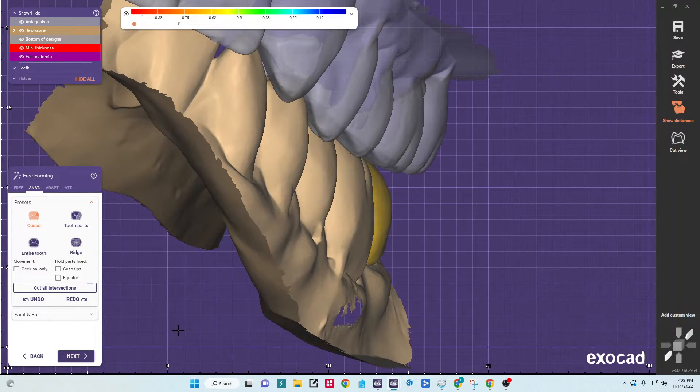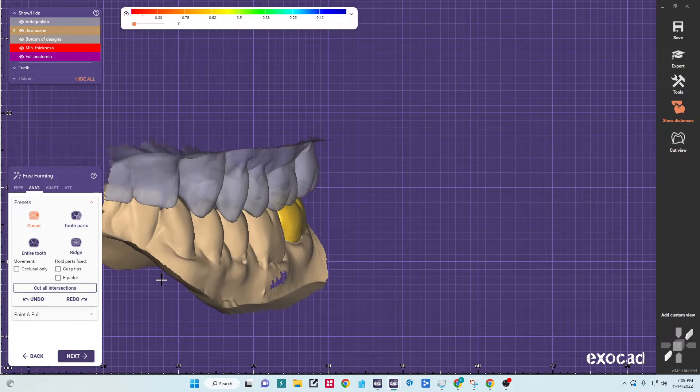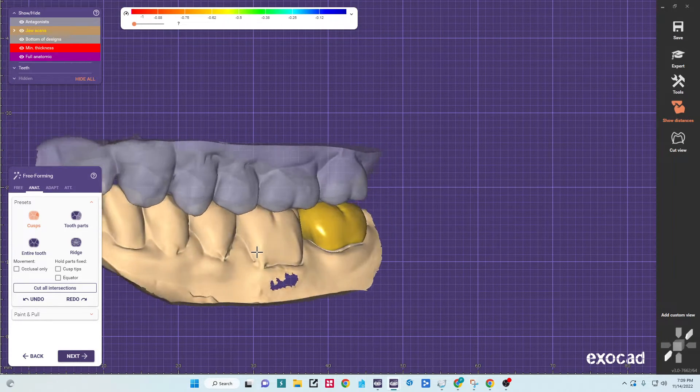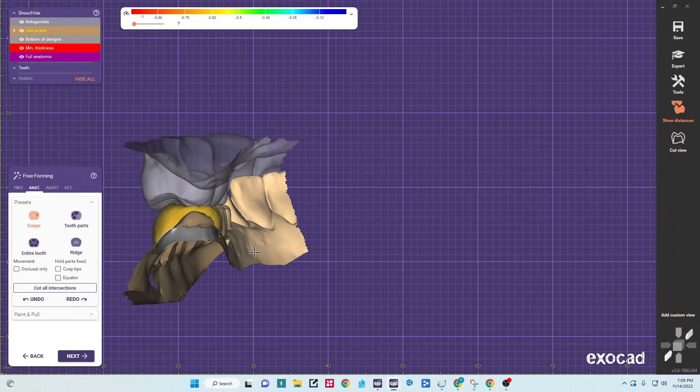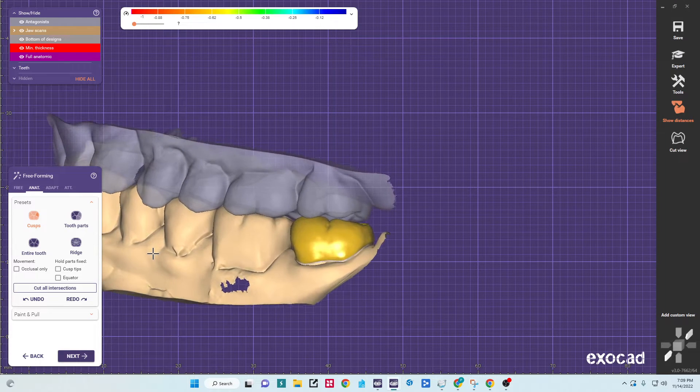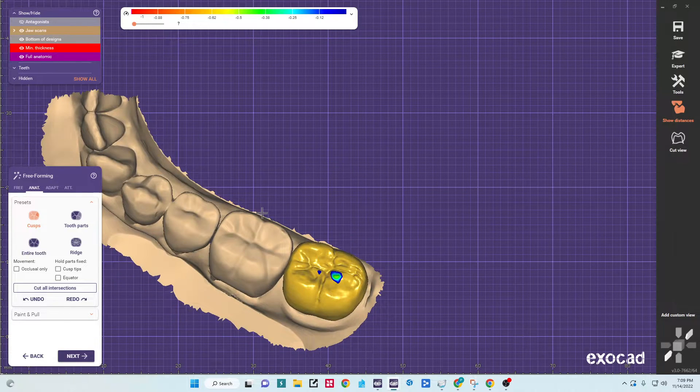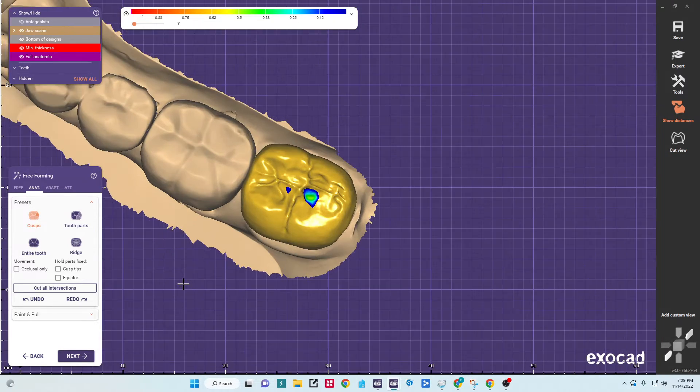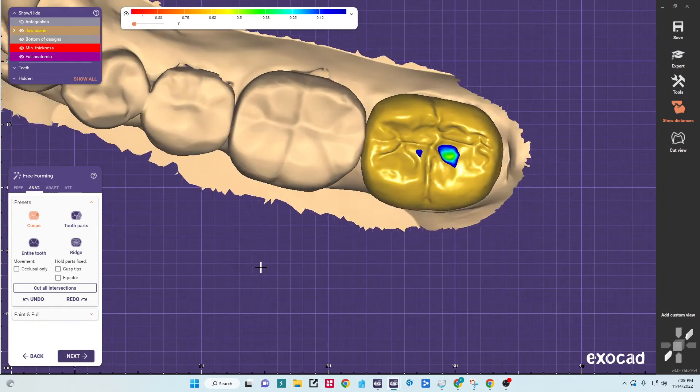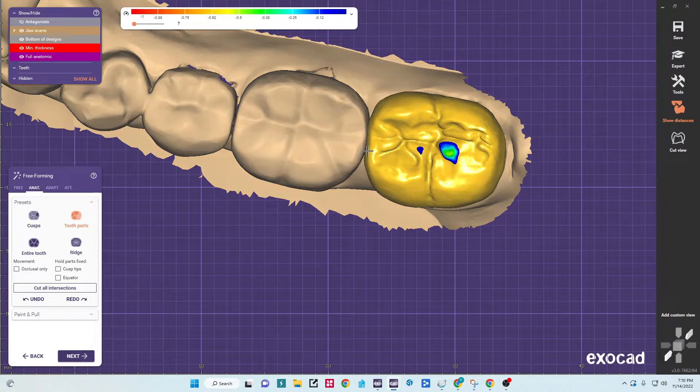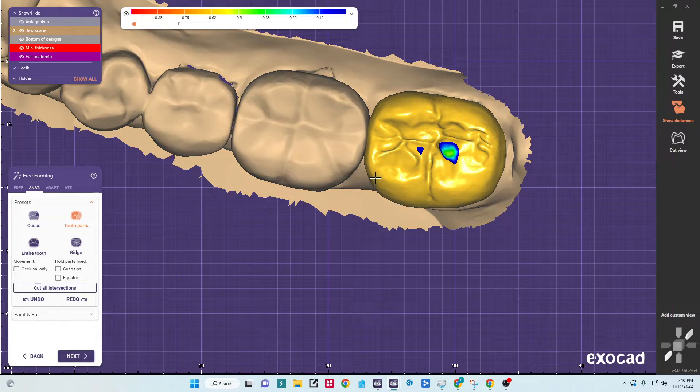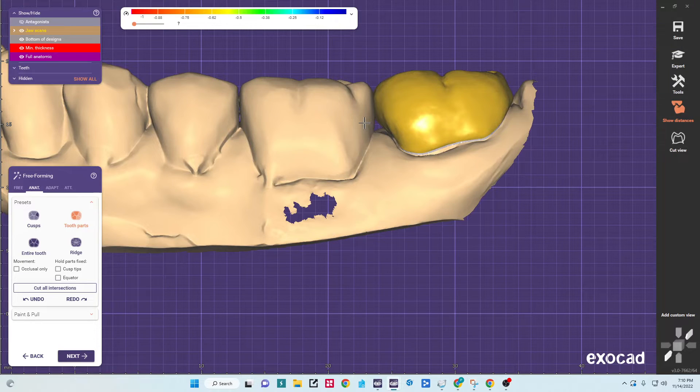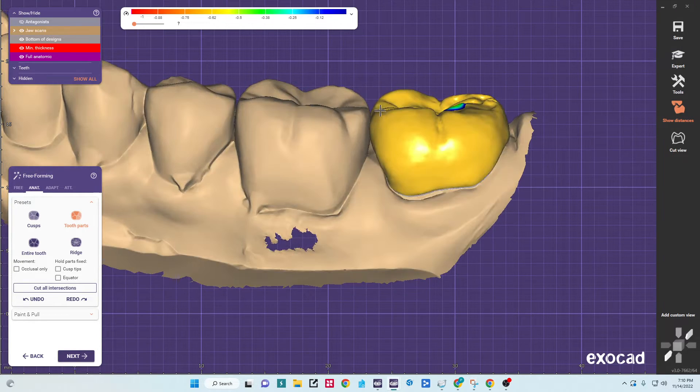So now under the free-forming, first thing I like to do is look at our buccal emergence. Looks pretty good, maybe slightly bulky. And then our lingual looks pretty good as well. So I'll turn the opposing off. We've got a couple of high spots. First thing I'm going to do is check my occlusal embrasures. I want to make sure that they're symmetrical here and here. They really look pretty good. And I'll check my embrasures in this dimension. Here I've got a little bit of a black triangle which I don't like, and then a little bit of gap here.